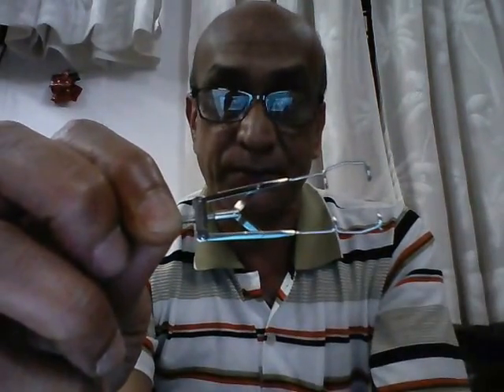So this is the universal eye speculum, which is used to separate the two eyelids during ophthalmic surgery. Before we close, I need to point out one more thing: what is the difference between the words speculum and retractor? The word speculum refers to separating two normal anatomical structures in surgery — like, for example, the two eyelids, which are normal structures. A retractor, on the other hand, which is also used in various types of surgeries, is used to separate the tissues which have been dissected by the surgeon — the tissue planes created by the surgeon. For example, a cat's paw retractor.